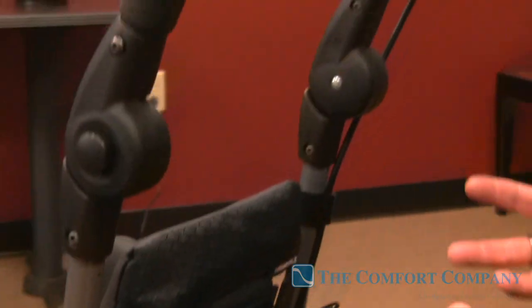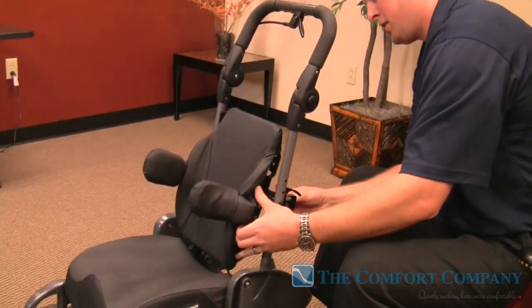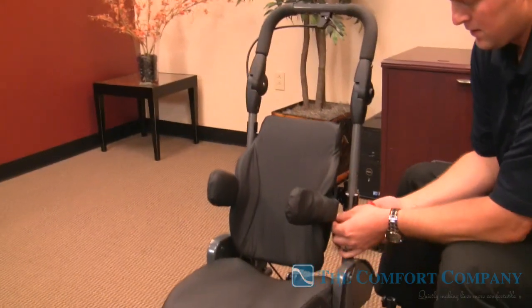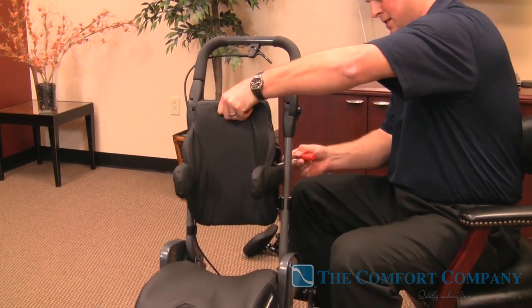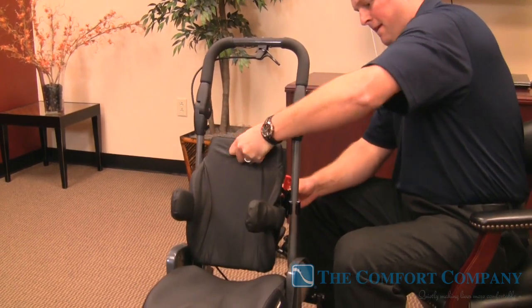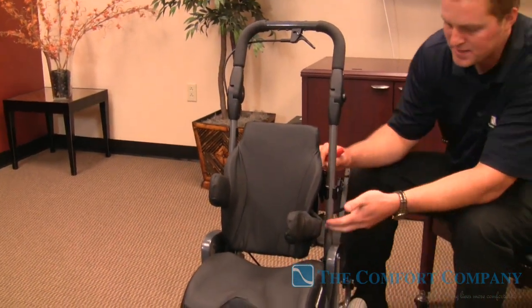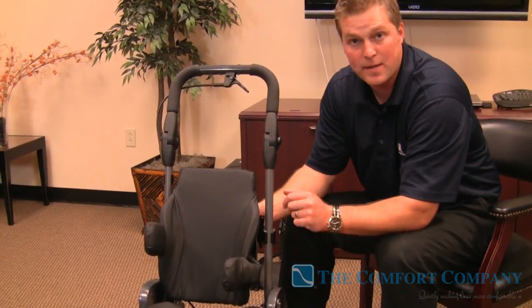It's the little things: the amount of adjustments and growth available. Not only do we have angle adjustability and height adjustability on the back with the pad, I can lock it down offset from the inside. Then I can even get height adjustment for the pads on the slots without having to move these wings. On this system you get five inches of height adjustment in a slot for the pads after it's locked in on the back.